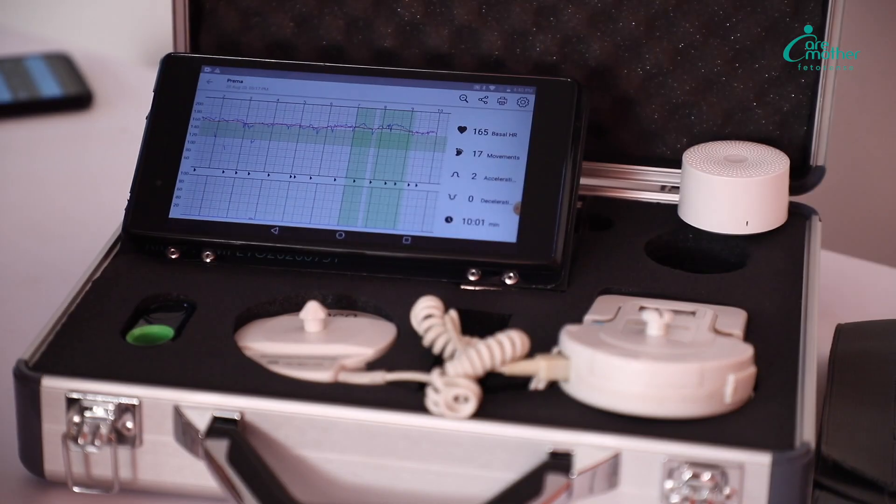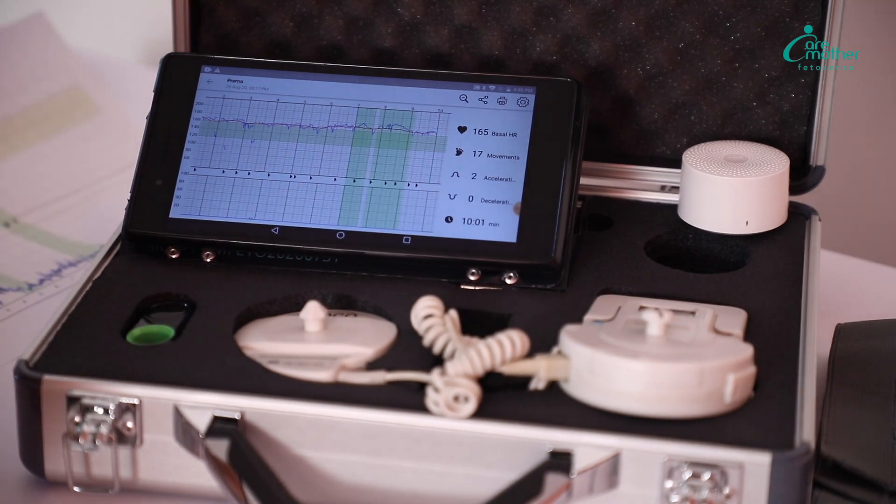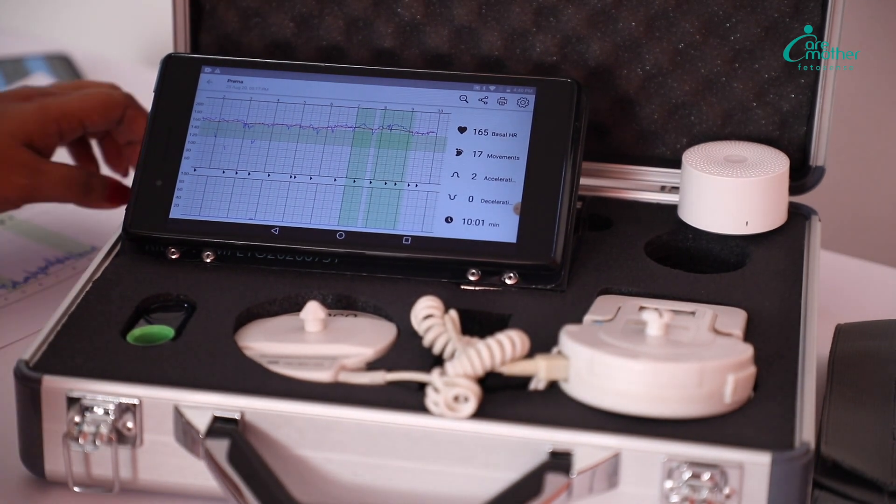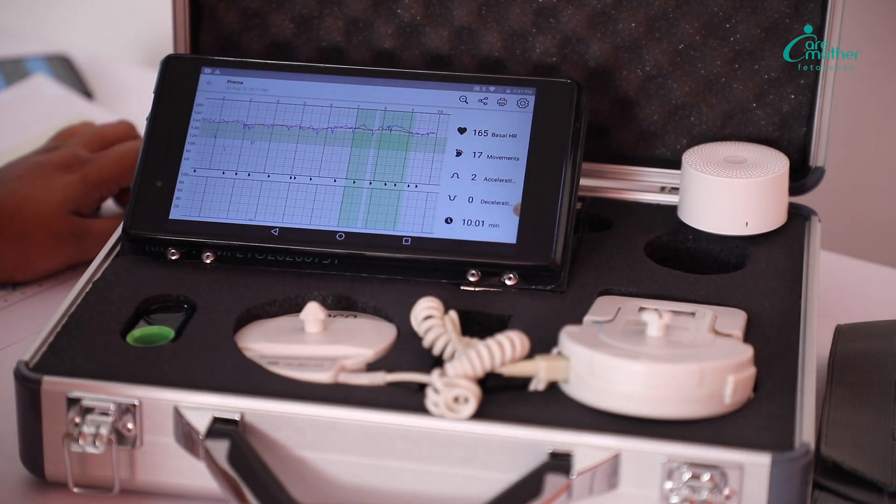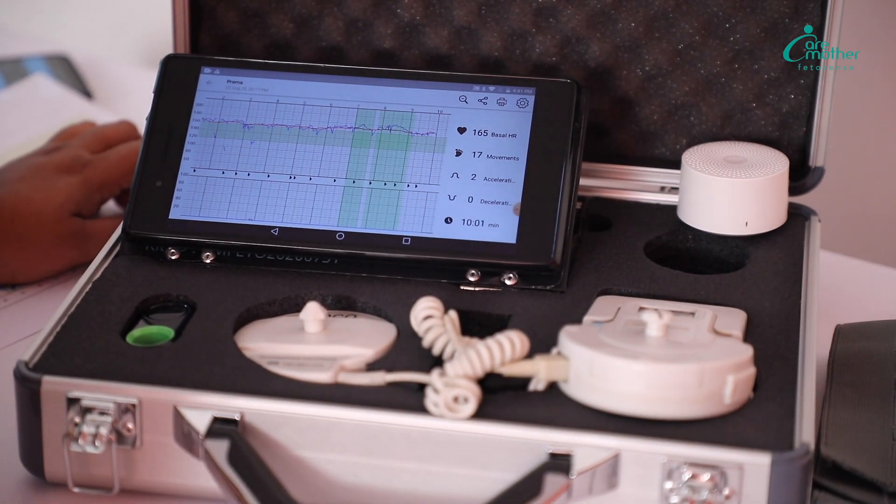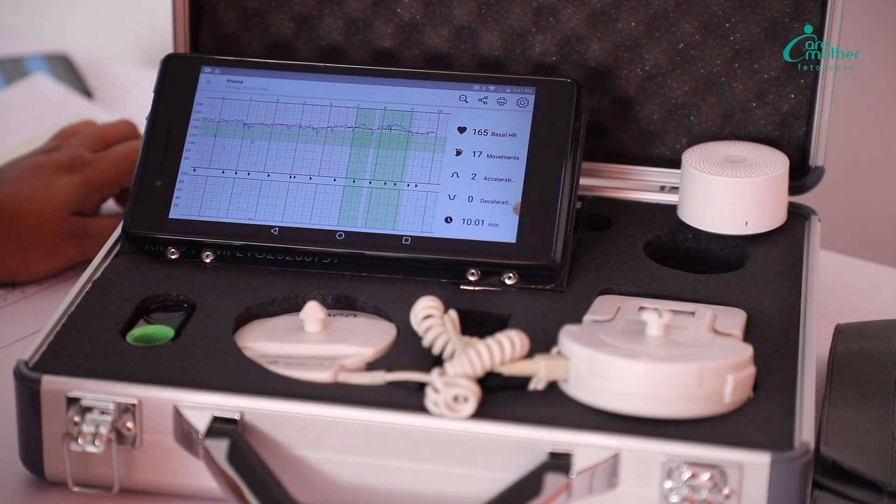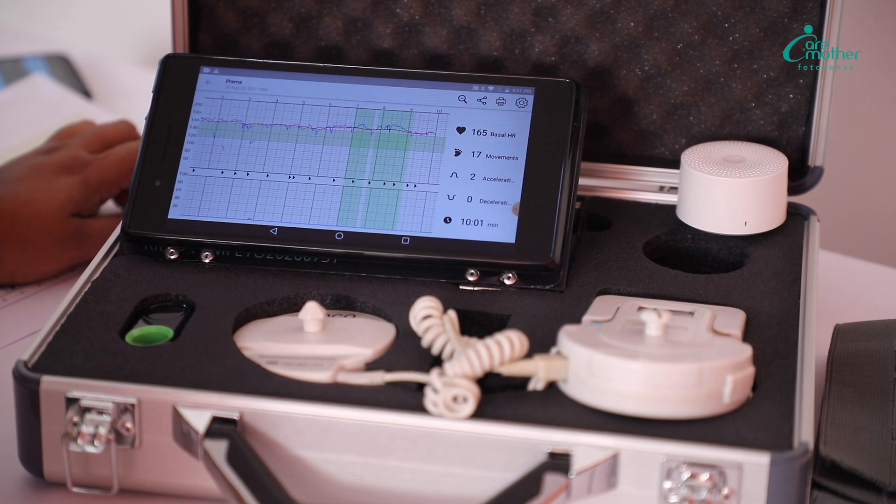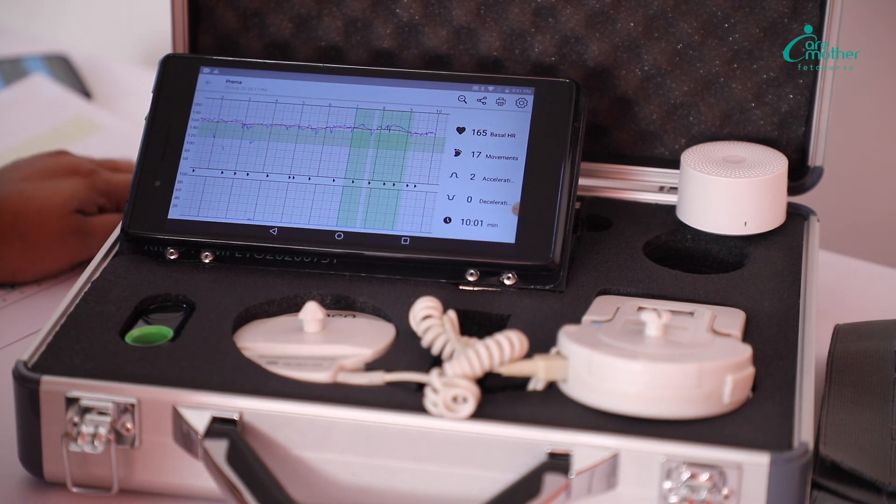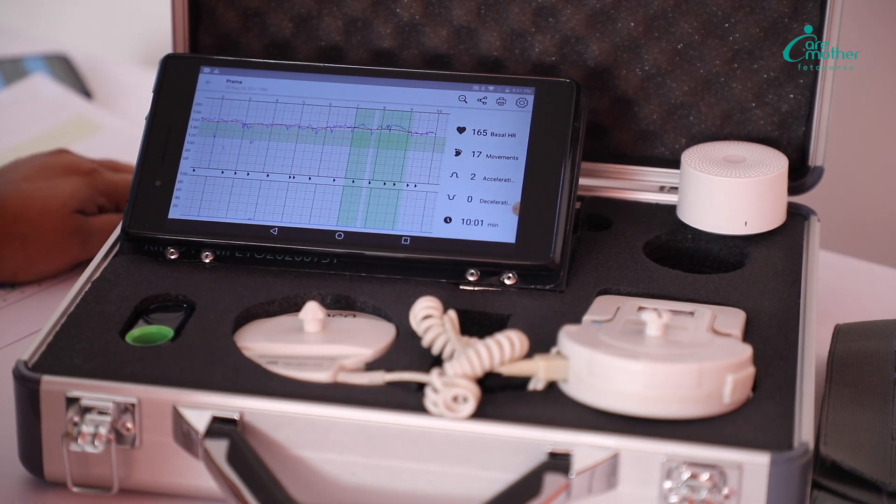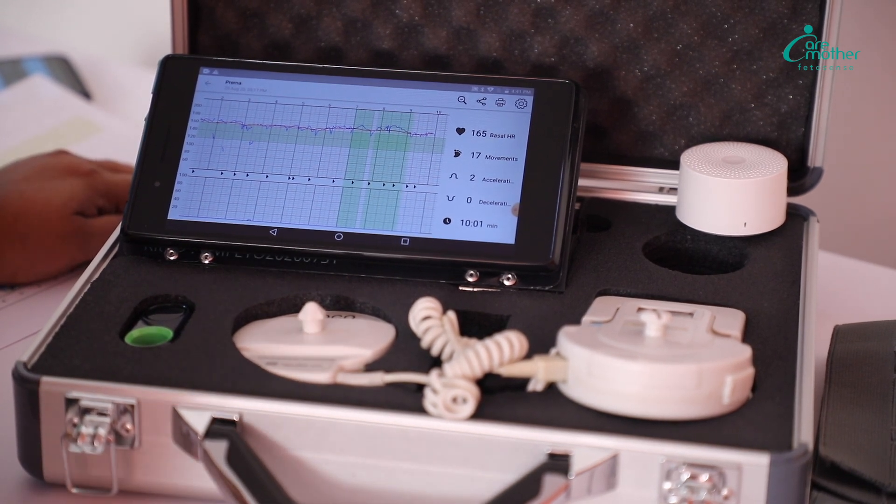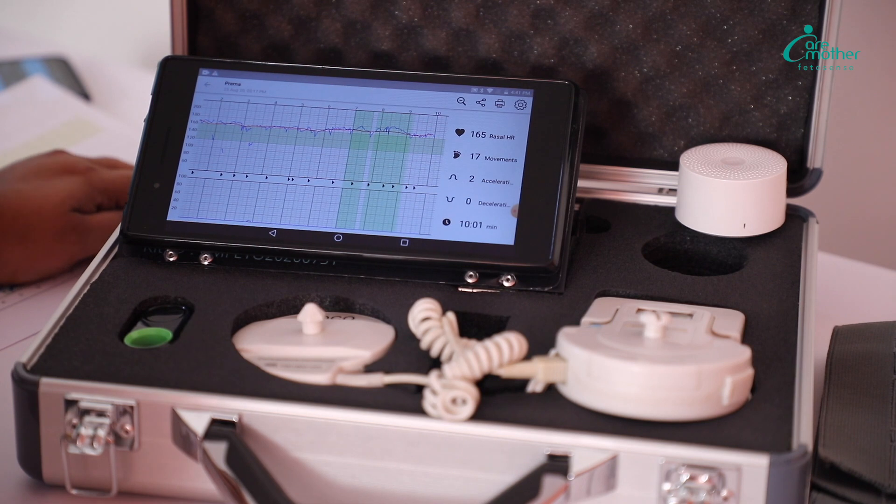This printing saves you a lot of cost in comparison to the thermal paper. On an average, in a year, you will be able to save 7,000 to 10,000 with this normal printing compared to the thermal printing.